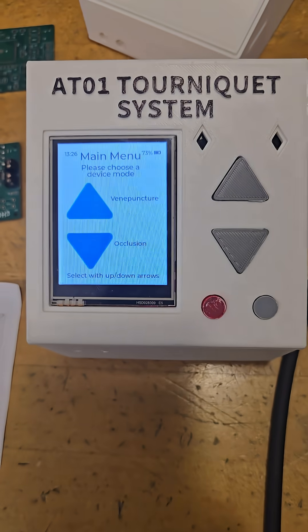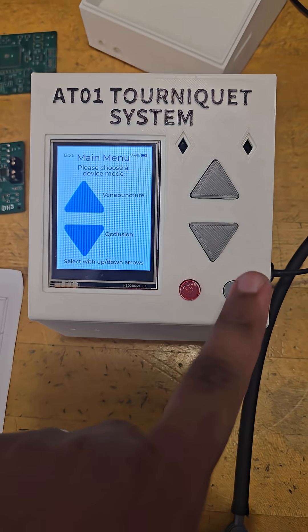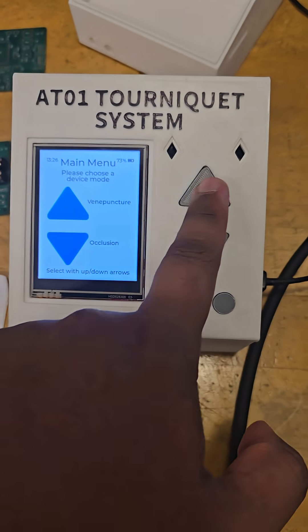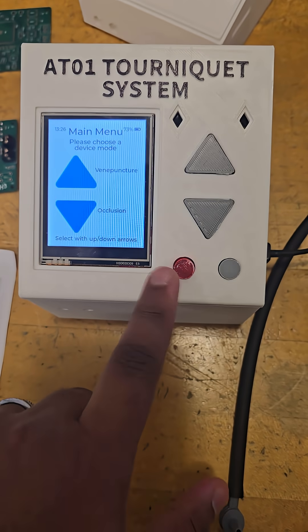This is our actual device. You can see these buttons - you can use them to choose modes and whatnot.